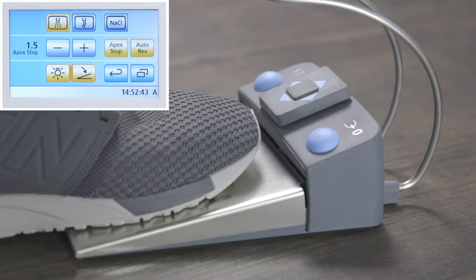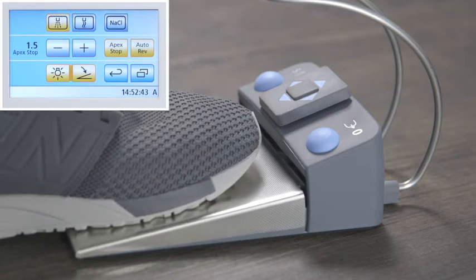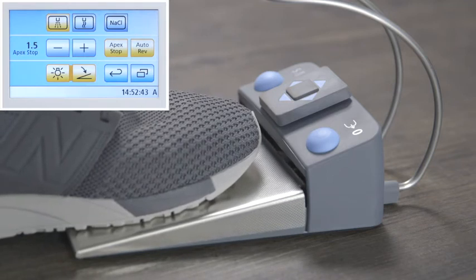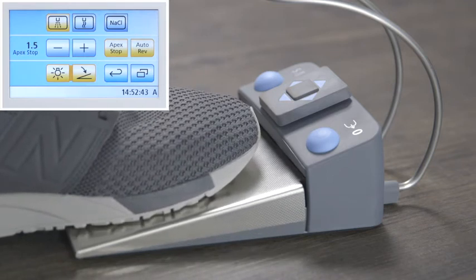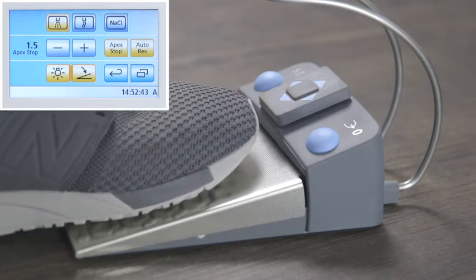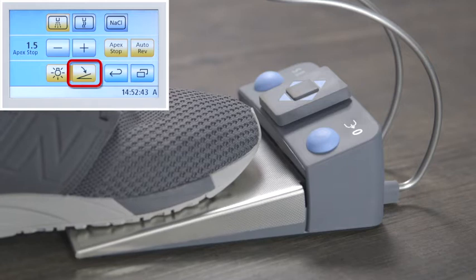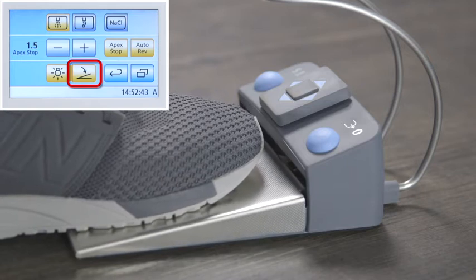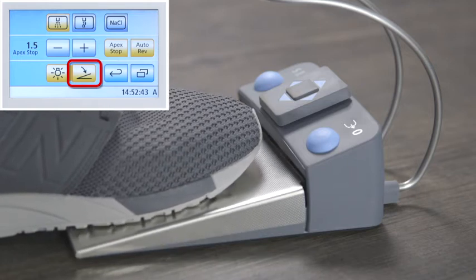With the speed foot control, the intensity can also be modified by pressure. This can be set in the instrument screen when the instrument is removed from its holder.